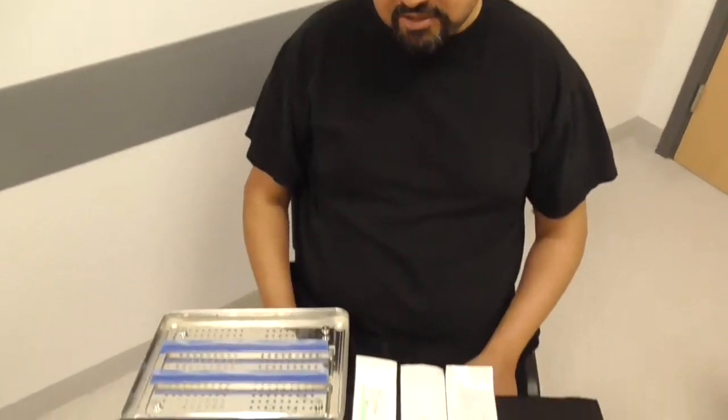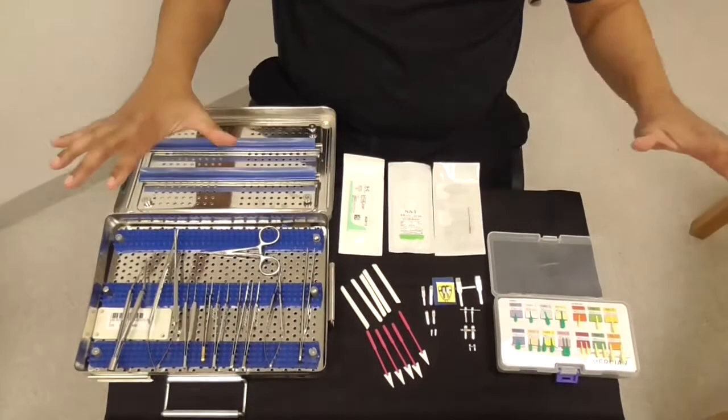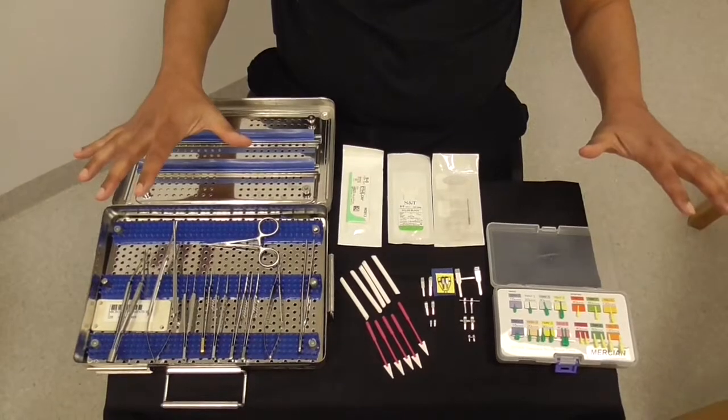Hi, I'm Sanjay Machum, a plastics and hand surgery consultant from Yorkshire. For this Medicine in a Nutshell, we're going to have a quick run-through of the microsurgical kit.